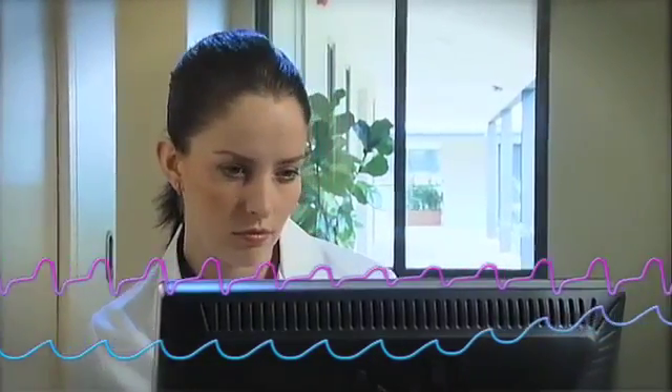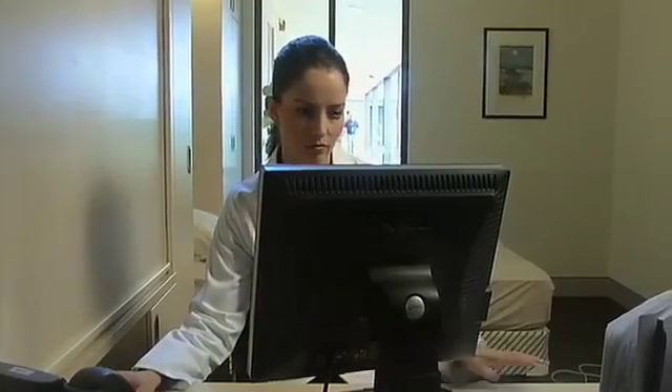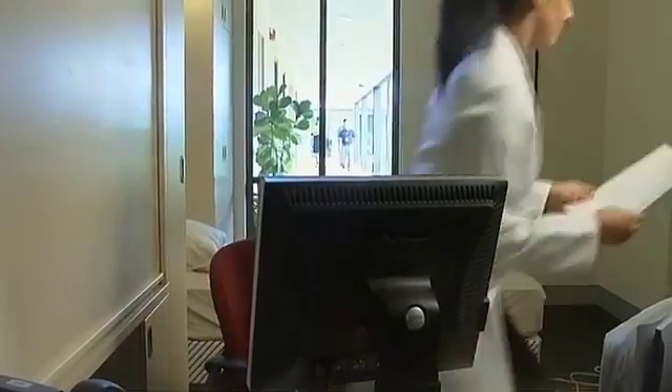and I see, oh yeah, this patient has got a problem, so this is the patient I have to spend my time on, which makes the use of my time much more efficient, because I can concentrate on those patients who need my help, rather than having to just find the one patient that needs my help.